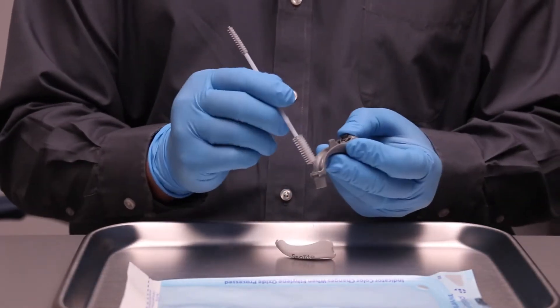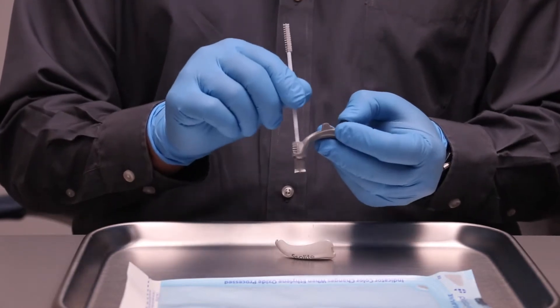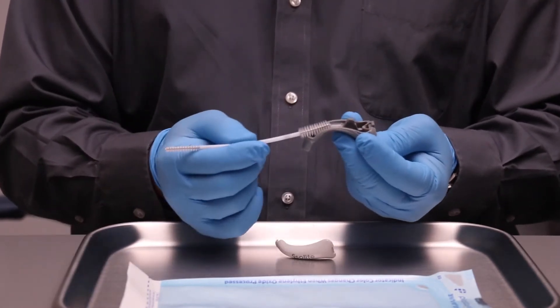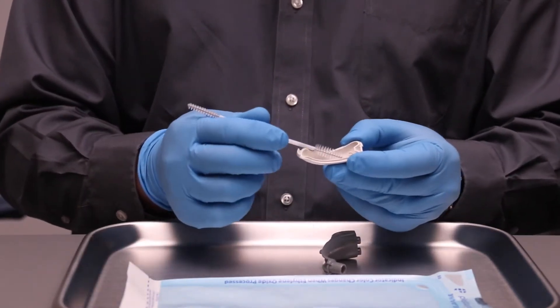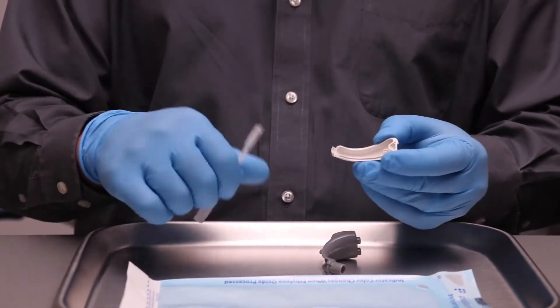You need to clean the bottom portion of the adapter as well as the upper portion. Once you've finished cleaning, you can now place them into the autoclave bag.